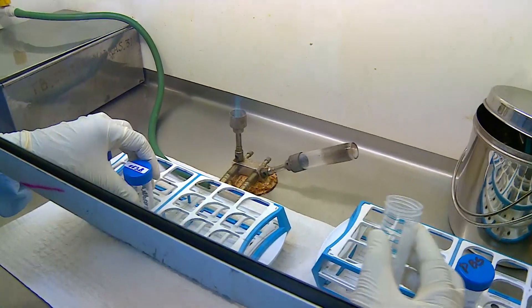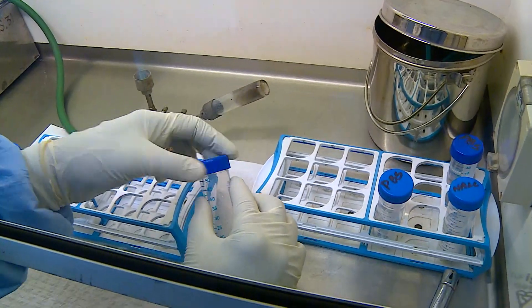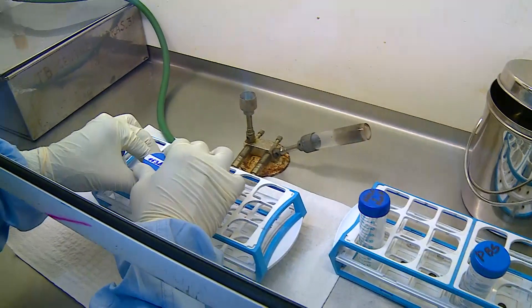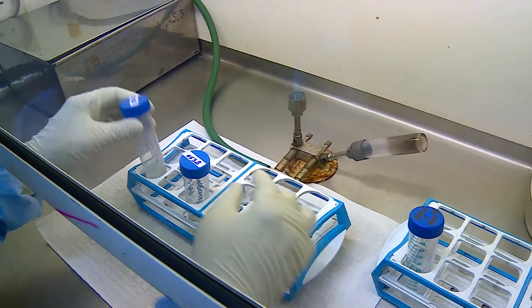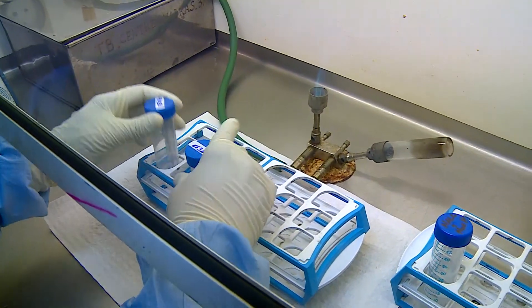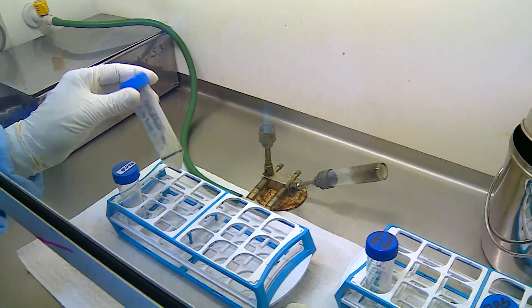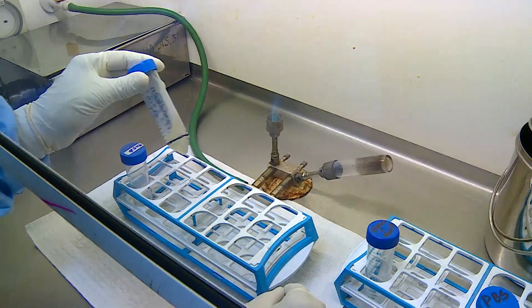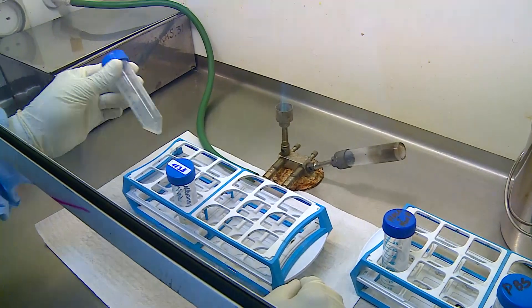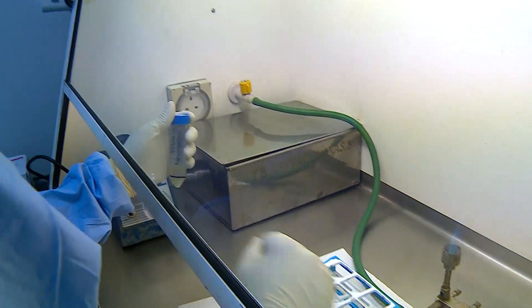Once the reagent is added, the content in the tube is mixed gently by inversion. Mixing by inversion ensures that all sample trapped under the lid is brought into solution. The mixing must be gentle, because vigorous shaking will result in oxidation of the NALC powder, which may not result in a good homogenized sample.